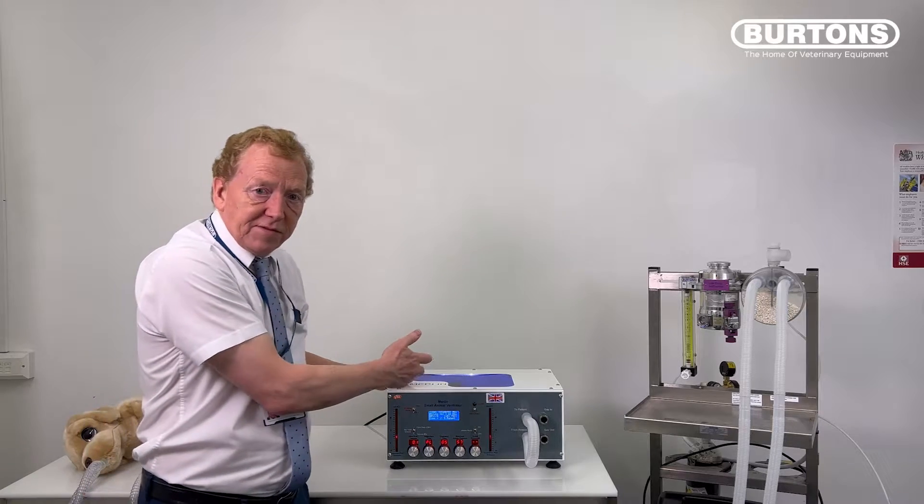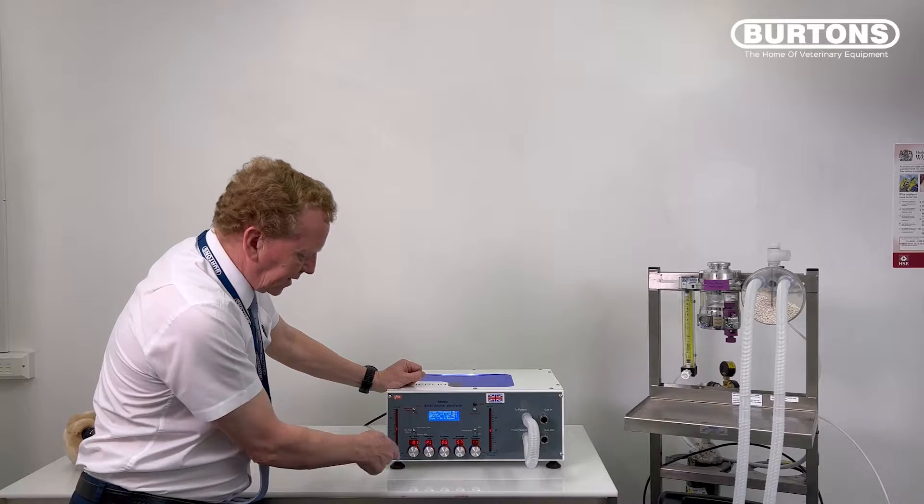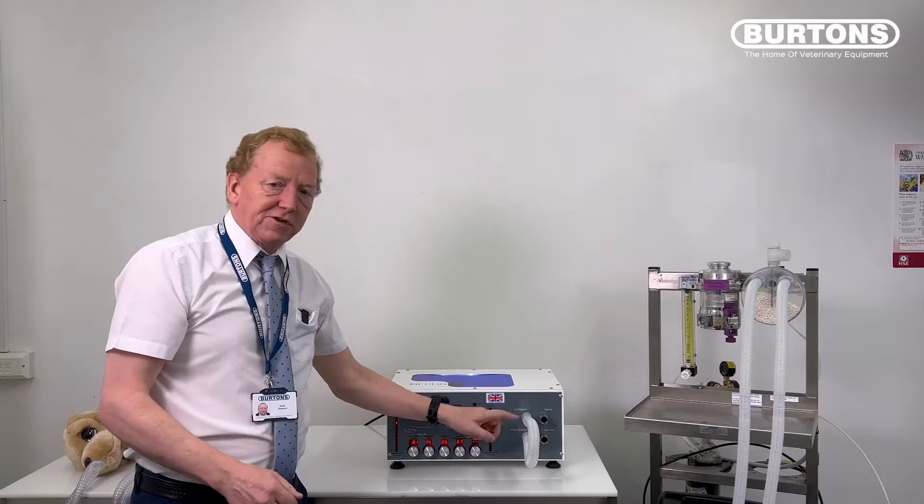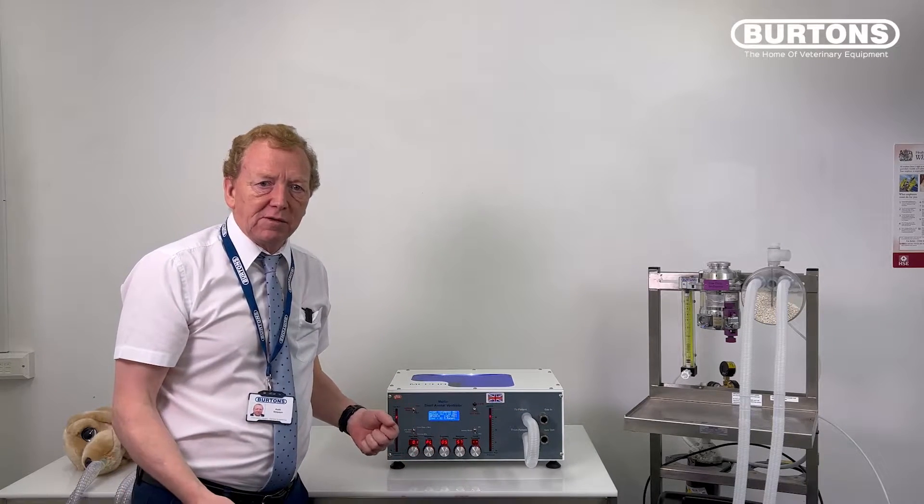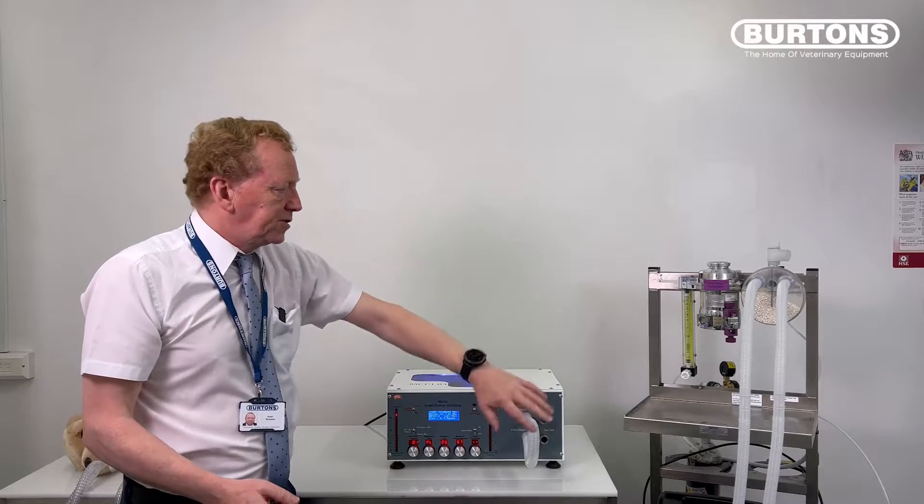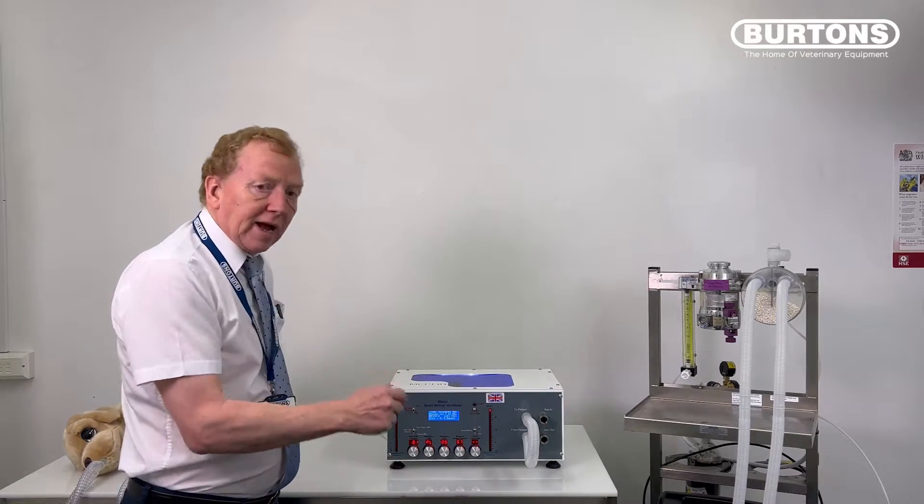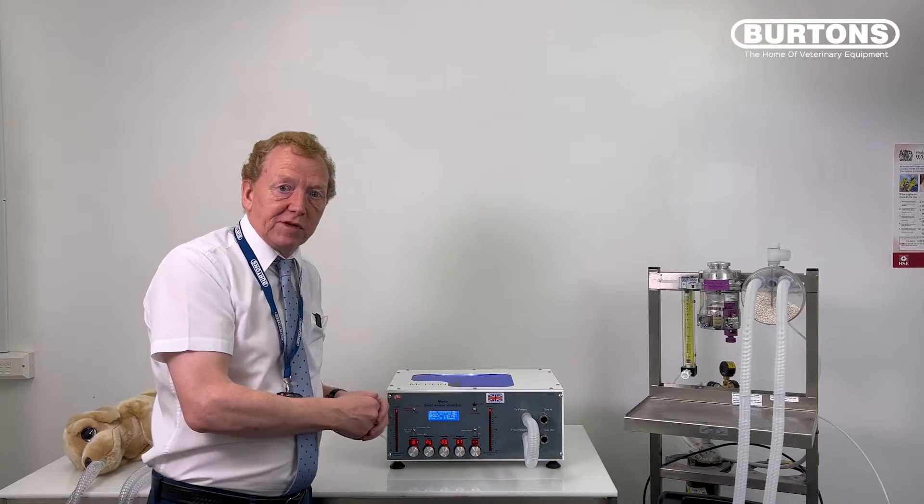Okay, so there's the 57, we got to pressure. It's gone back and started to do it again. If I look on the screen it says 61 mils, which for a little tube like this is almost perfect. Using a larger tube you might have got something like 100 mils. It doesn't matter—the point is, can it get to that pressure? If it can't get to that pressure on that tiny flow, you've got a leak somewhere in the system.